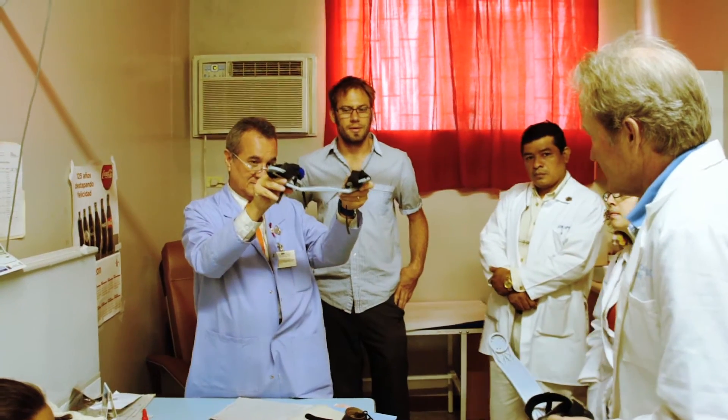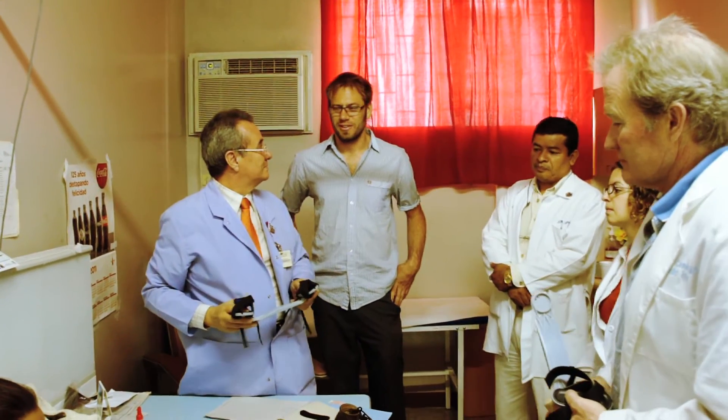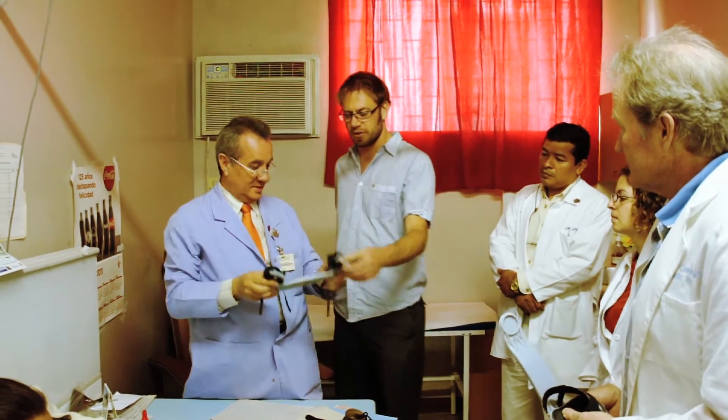When you want to communicate with the outside world, you can't just put a 3D file in front of a doctor and always have them imagine it. Their minds aren't quite wired that way. So there's no substitute for putting a looks-like, works-like prototype in their hands and then getting their feedback.